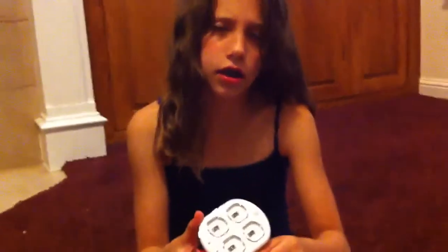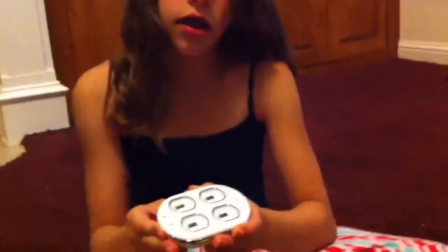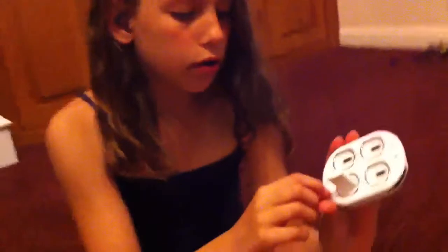Stylish! If you're using the rechargeable batteries, this is how you use it — put it on, put it off, then put it inside. If it's plugged in, a yellow light will come up — that means it's not fully charged. When you wake up in the morning, it will turn green. Does that battery last all day? Yeah! One time I stayed up until one o'clock and it still lasted.